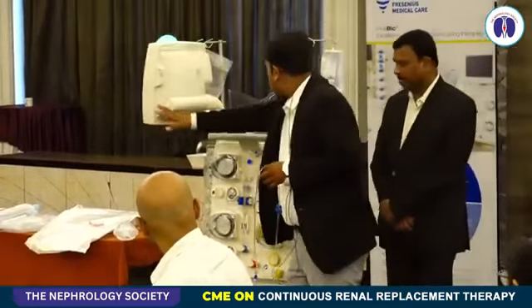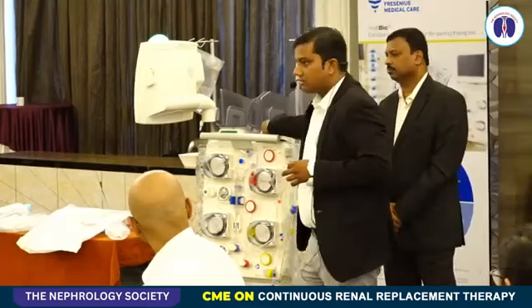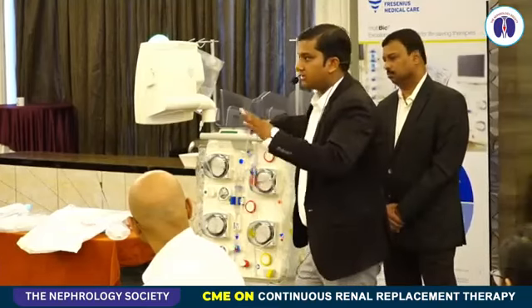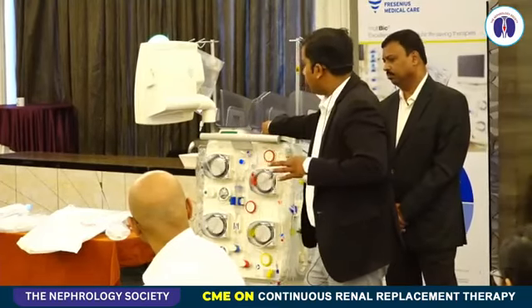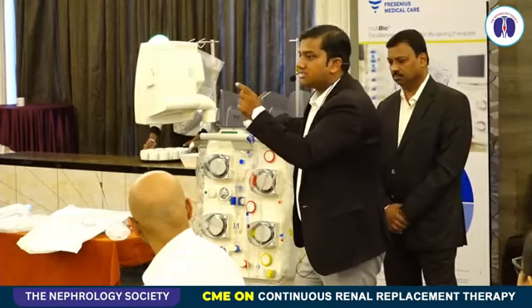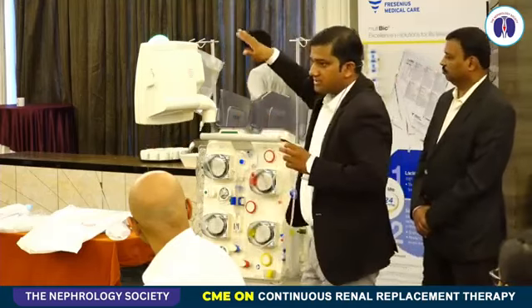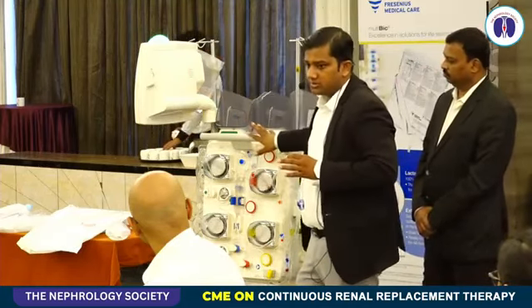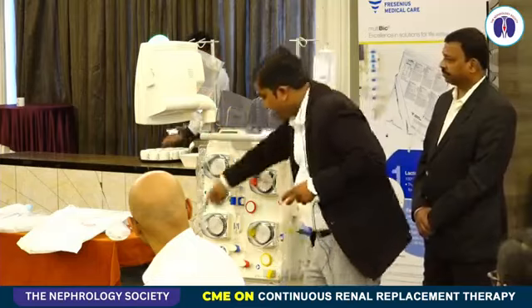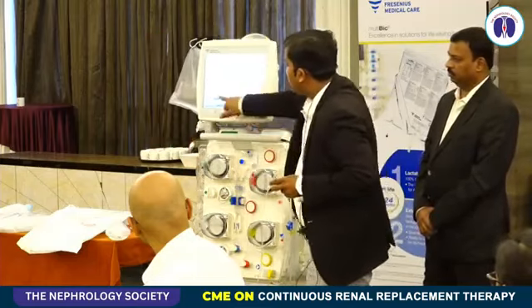If something has happened on the scale, or someone has put weight or a curtain or some device is touching the scale like this, which I have done, it will give an error on scale 2. This is scale 2. Once I remove this, it goes. Similarly for this, and same with this. Okay, this is coming now. No blood is detected.